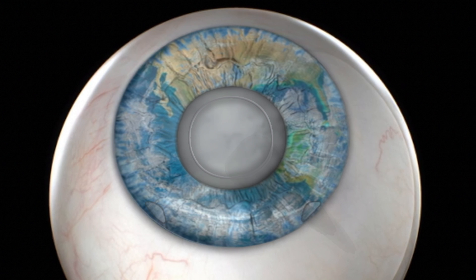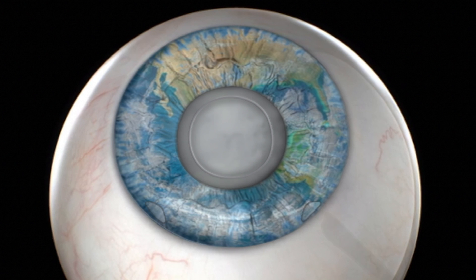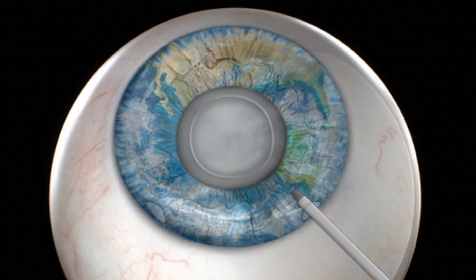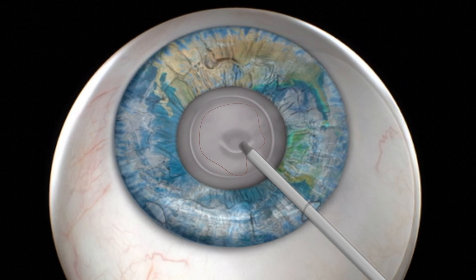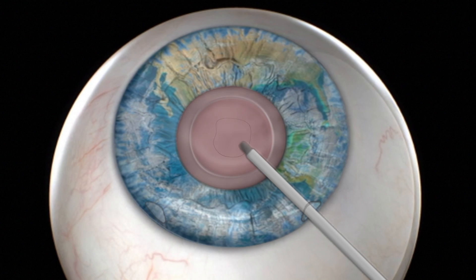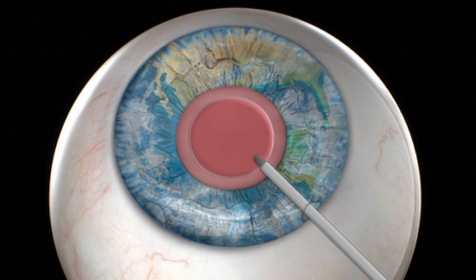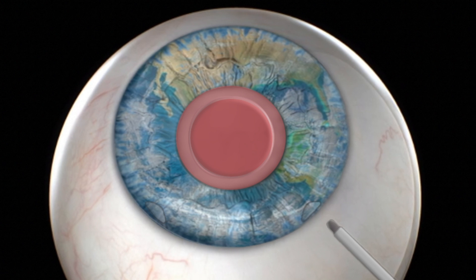This opening allows the cataract lens to be extracted without removing the capsular bag. An ultrasound probe is then used to break down and gently remove the cataract lens with suction. The red color that becomes apparent after removal of the cataract lens is due to the reflection of light from the eye's retina.